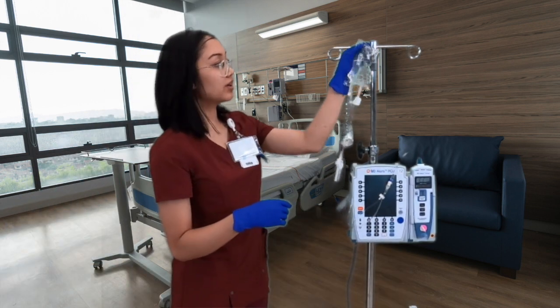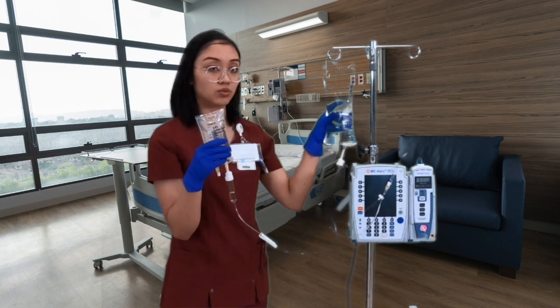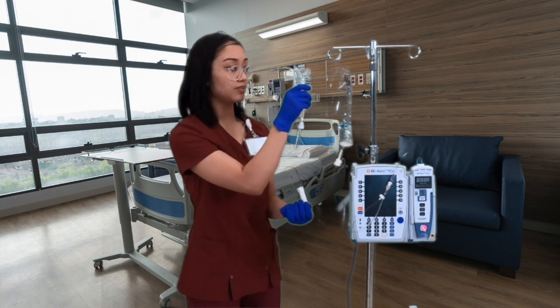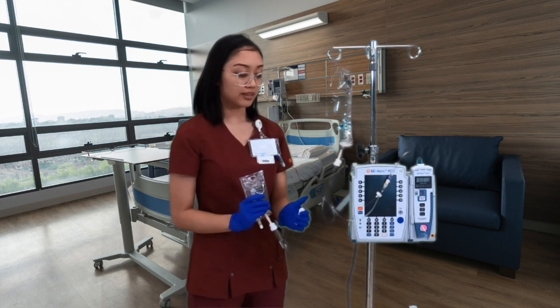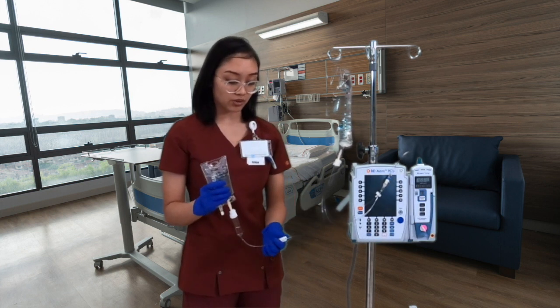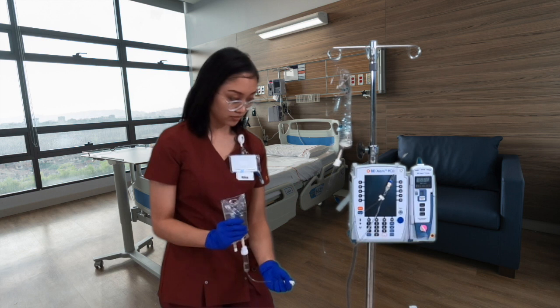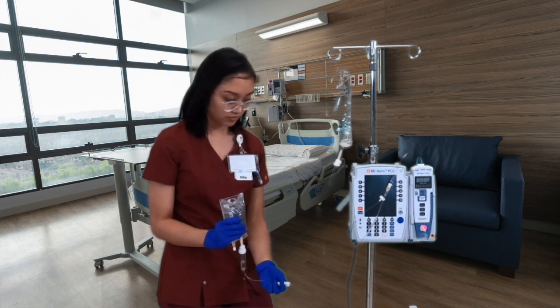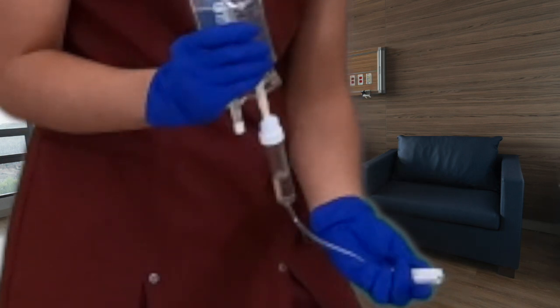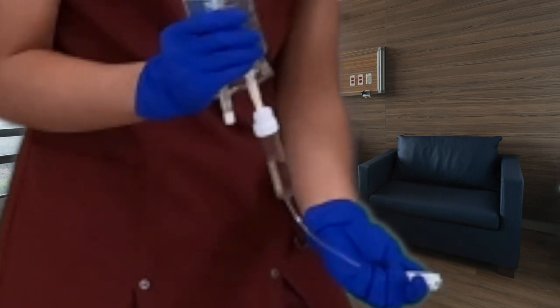The next thing is back-priming. We do not prime forward — we want to use gravity to prime this line. Lower the secondary bag below the primary bag, then unclamp it; you should see the chamber fill up. As you can see, fluid is going up through the secondary line. Go ahead and clamp that shut.